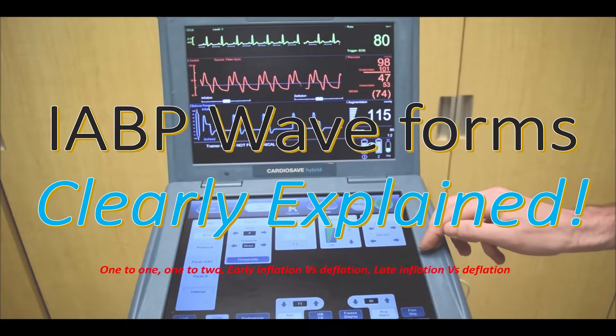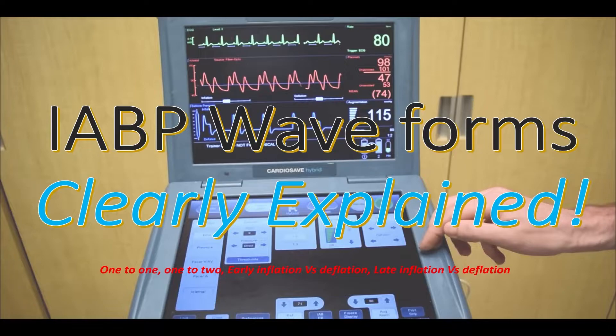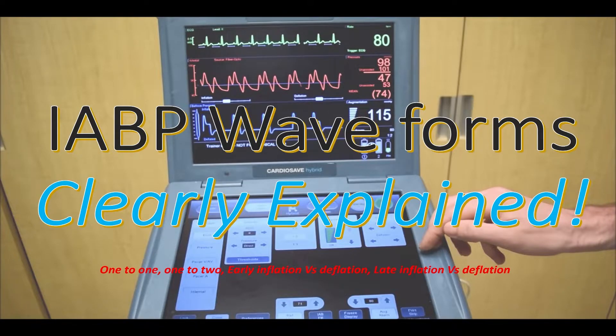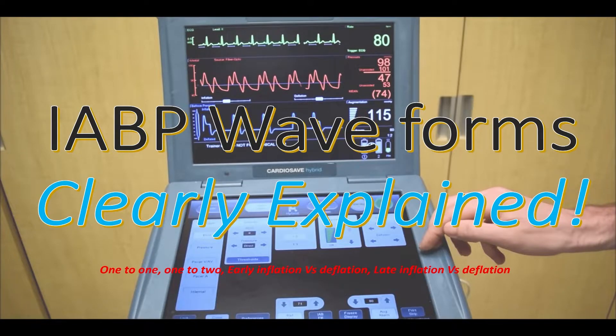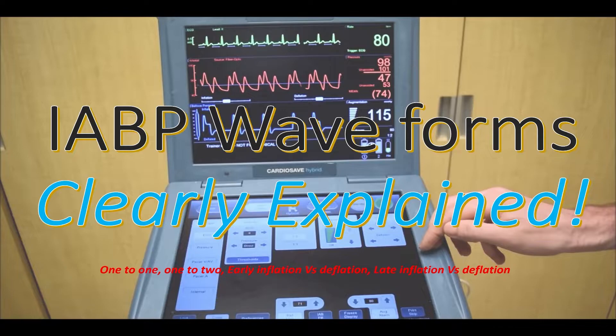Hello everyone, Michael Yamana here back today with one of our most requested videos: Interpretation of Intra-Aortic Balloon Pump Waveforms.